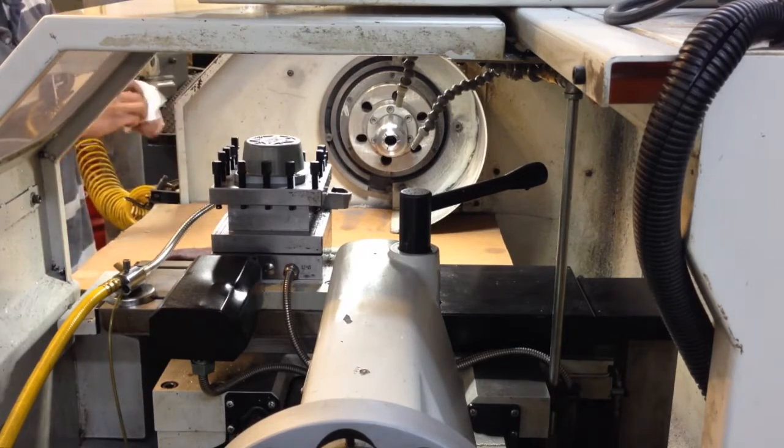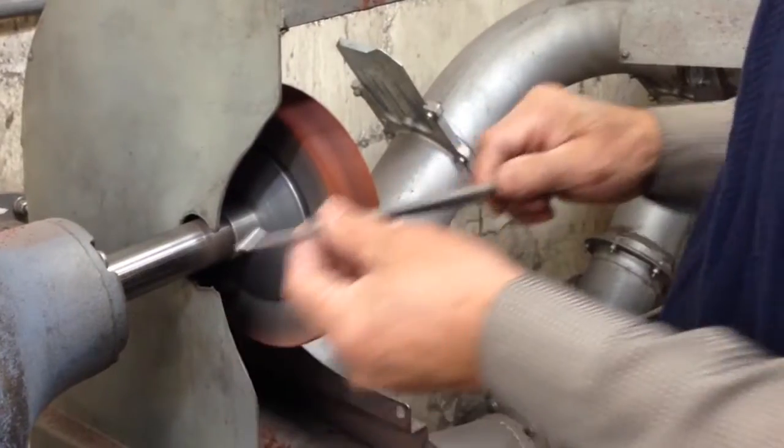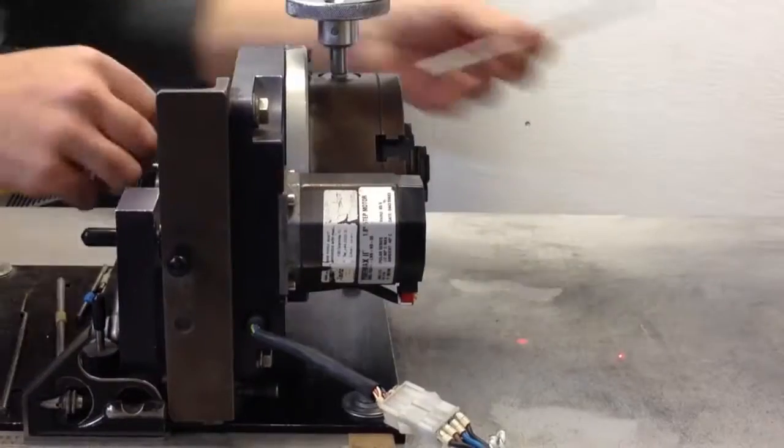In addition to manufacturing, we can repair and sharpen the instruments we manufacture or almost any surgical instrument made by other manufacturers around the world.